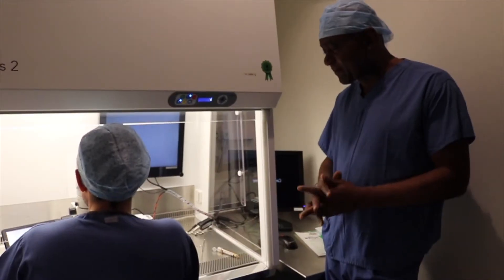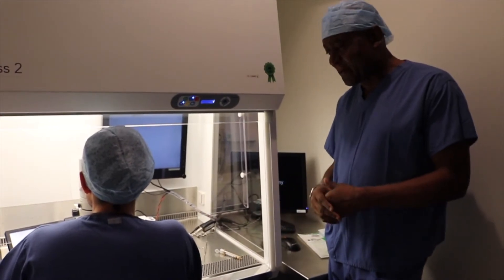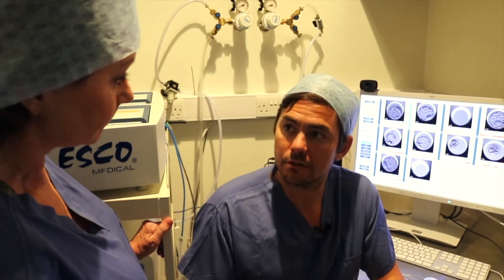I'm here with Rob Smith from Care London and we're going to talk about how our embryologists choose the correct embryo to put back. What we would do as embryologists is have a chat with George, talk through all the embryos that a particular patient has, and explain to him which ones we're going to put back and why. There are lots of tools and techniques we as embryologists use to make these very important decisions as to which embryo needs to go back.